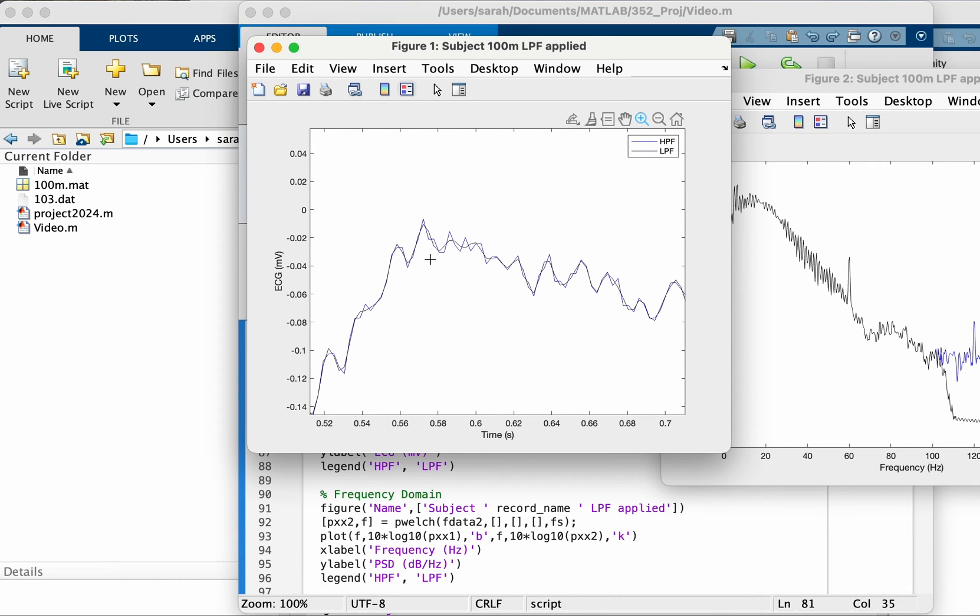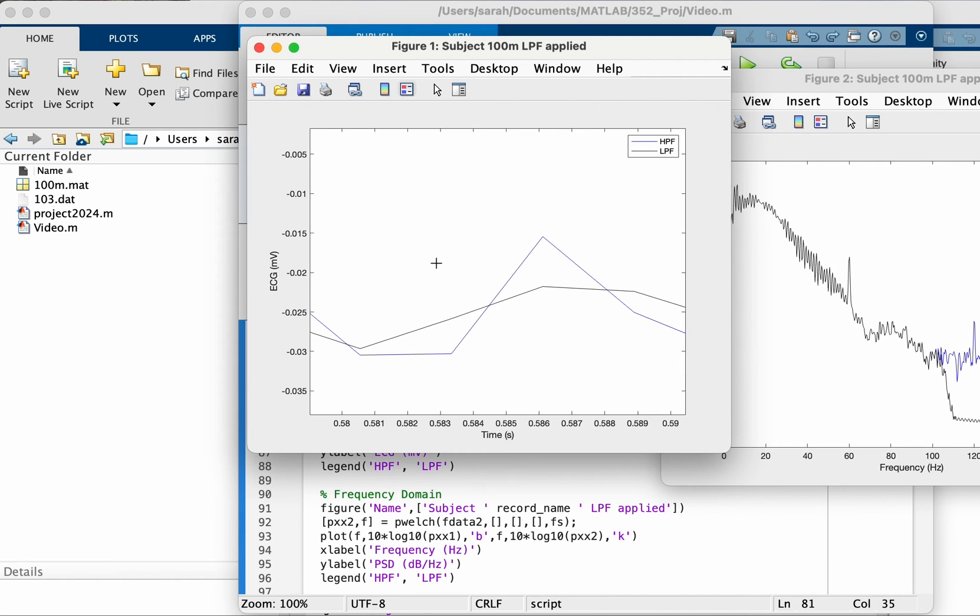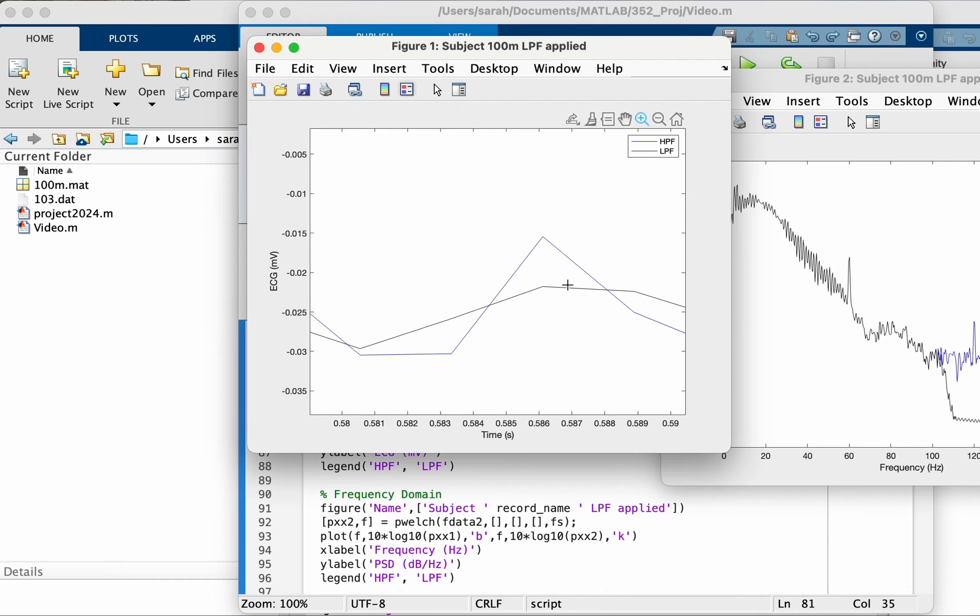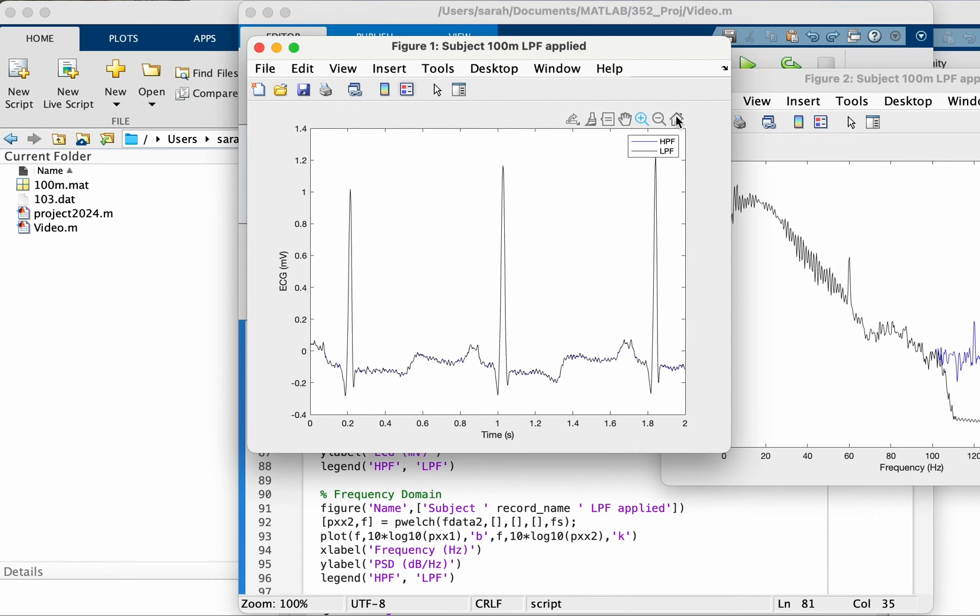Yeah, you can see a little bit. So this is the LPF in black, you can see a bit of smoothing. If you zoom in here, look, before the high pass there was this sharp here, now it's very smooth.